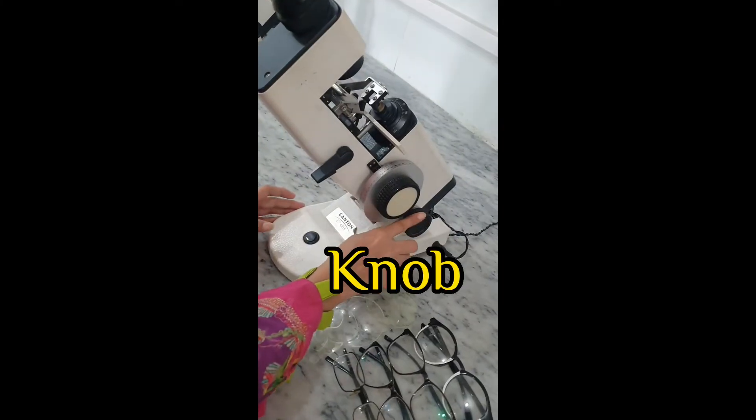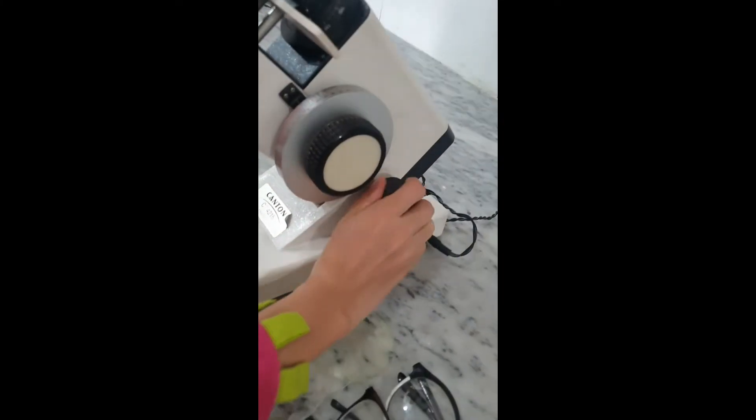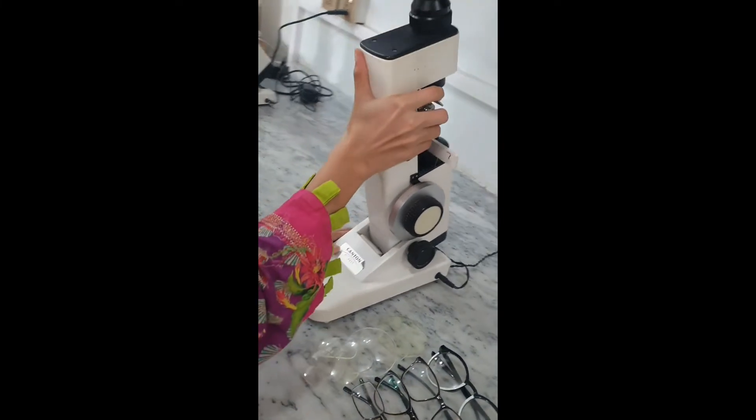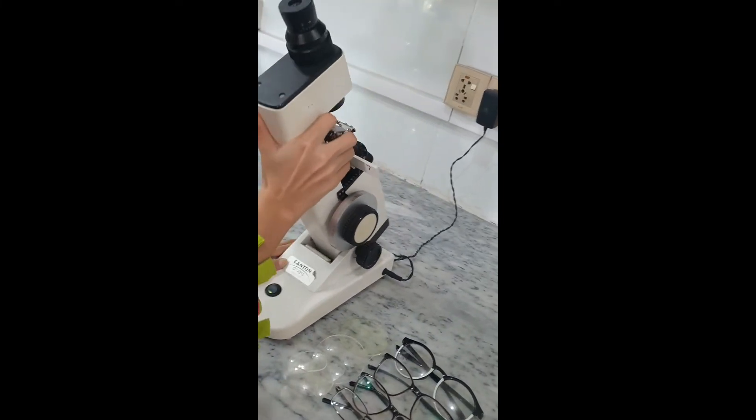Knob for adjusting the instrument for examiner's comfort. For using, adjust the device smoothly in order to get accurate power of the lenses.